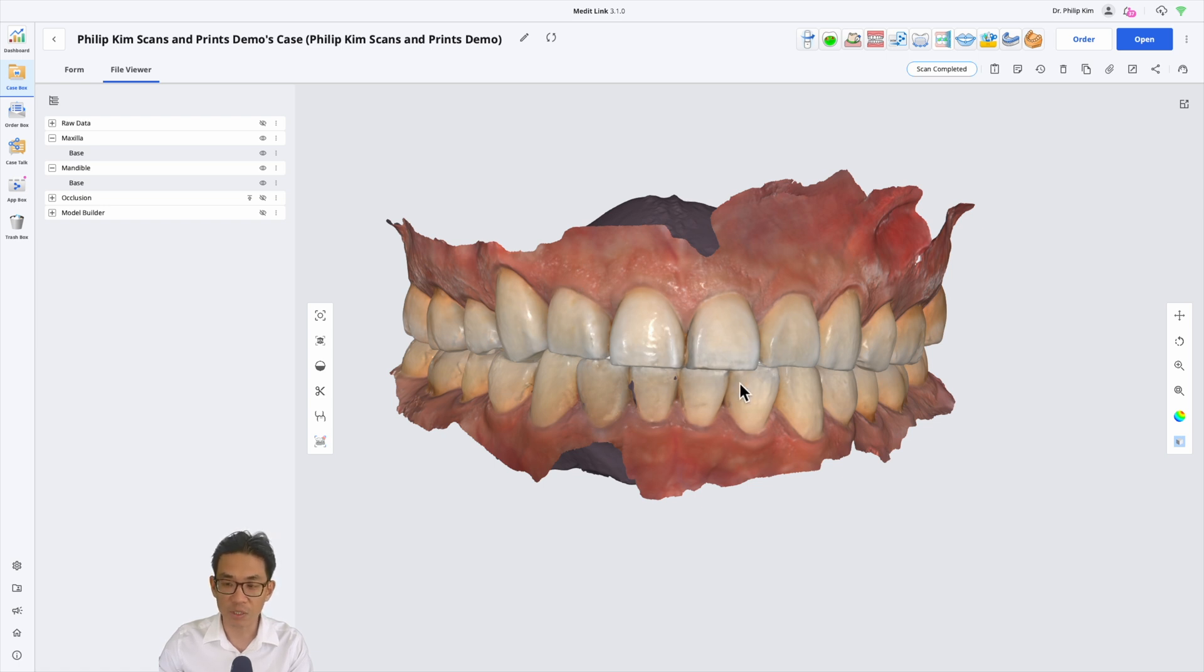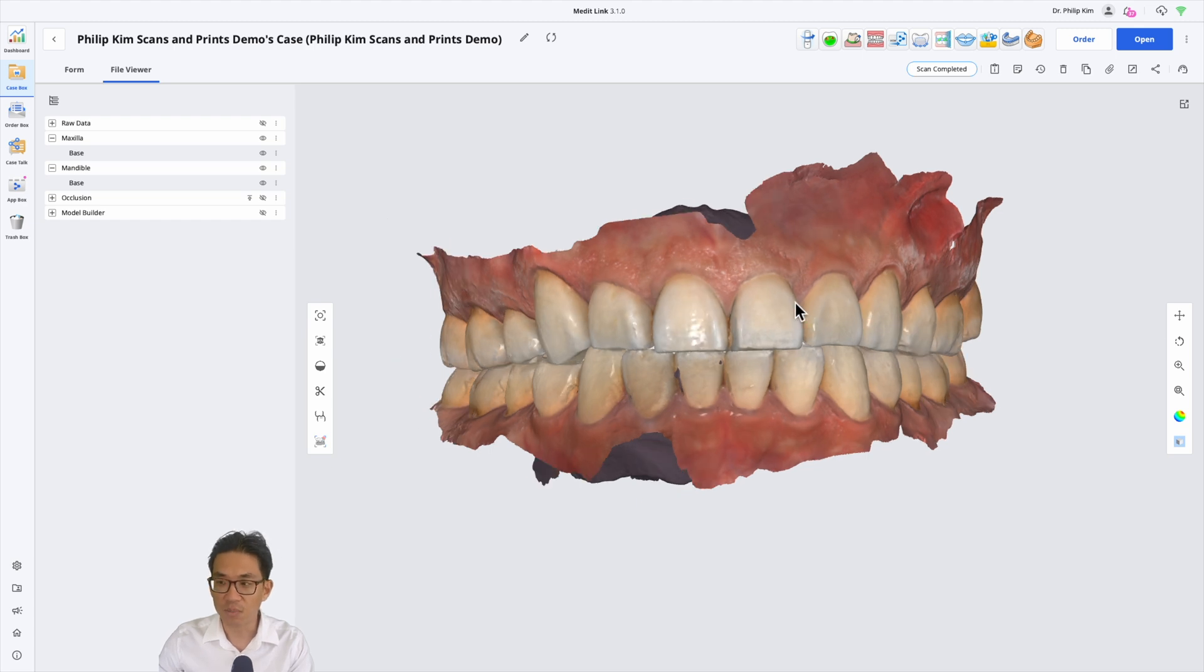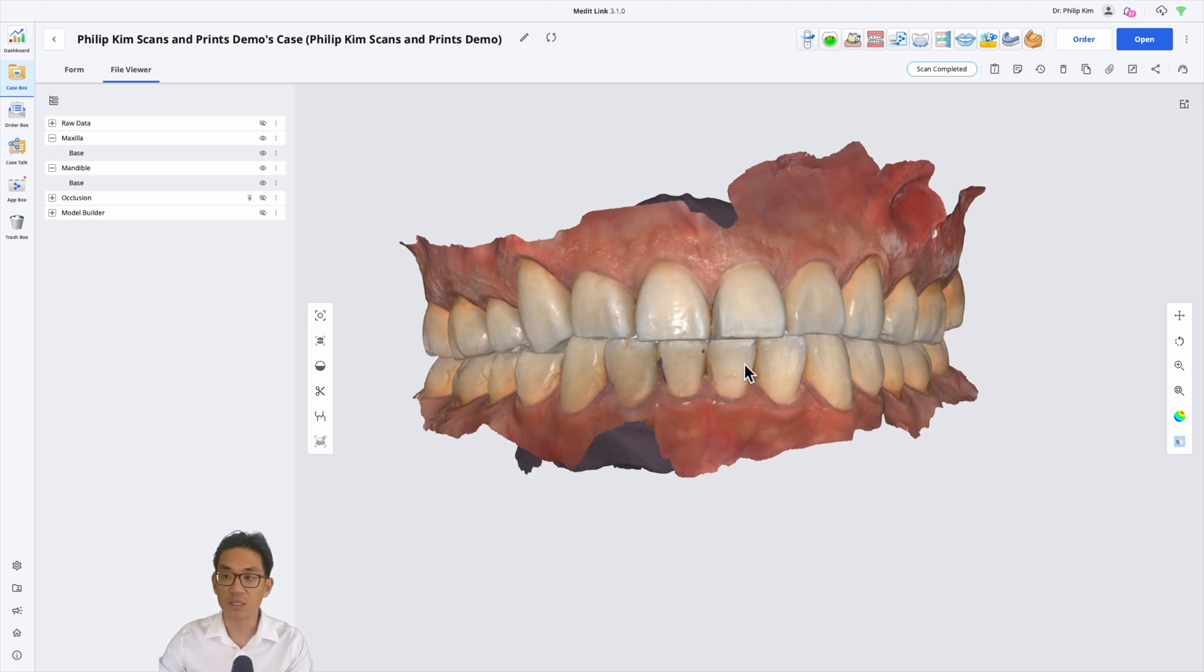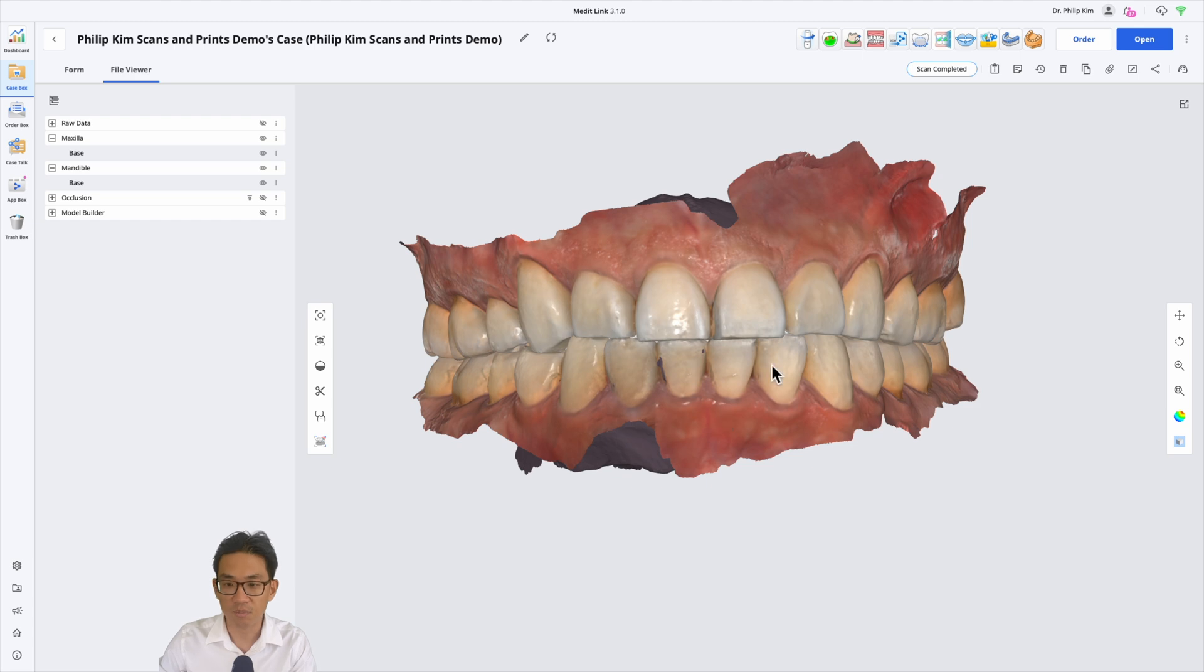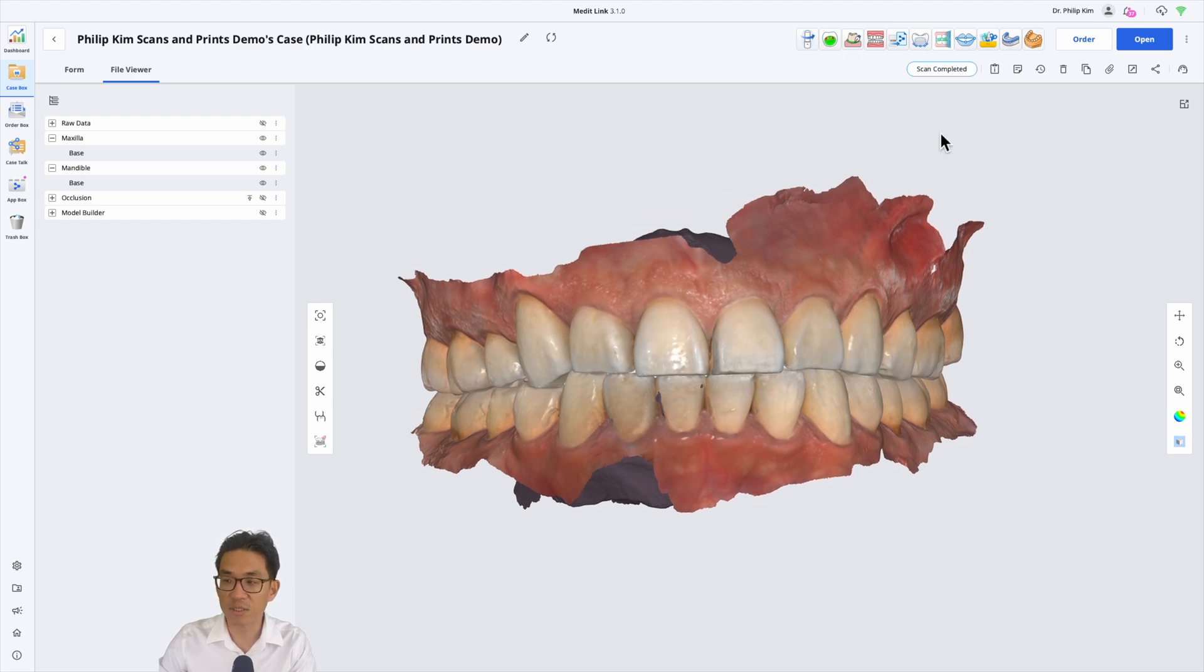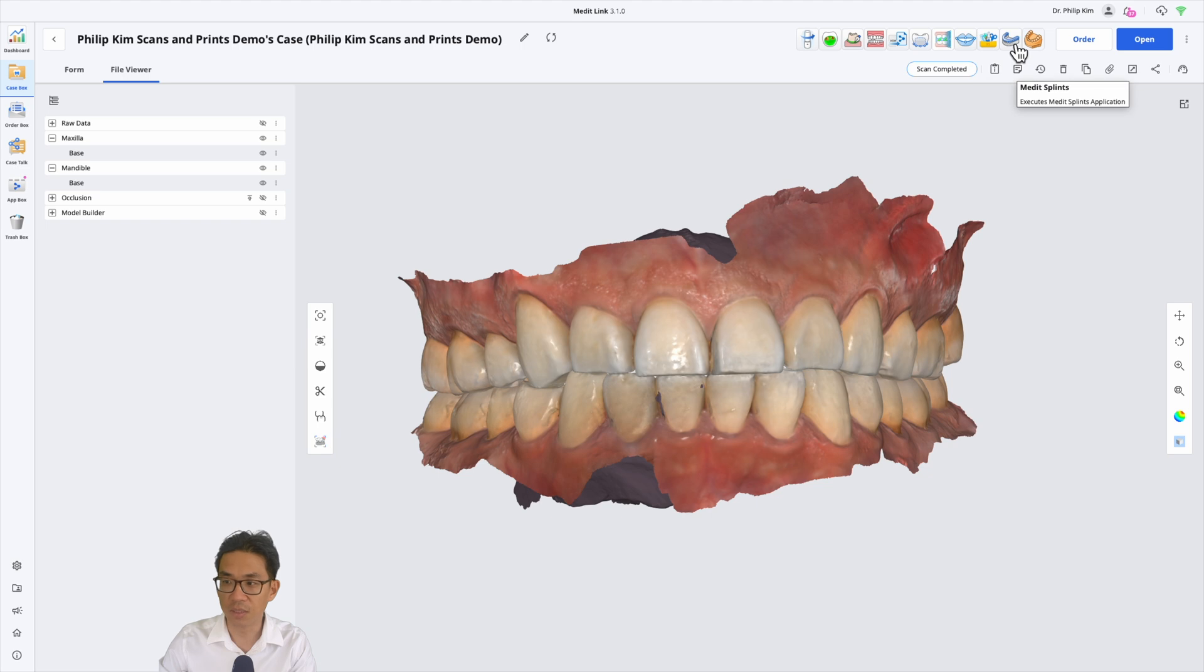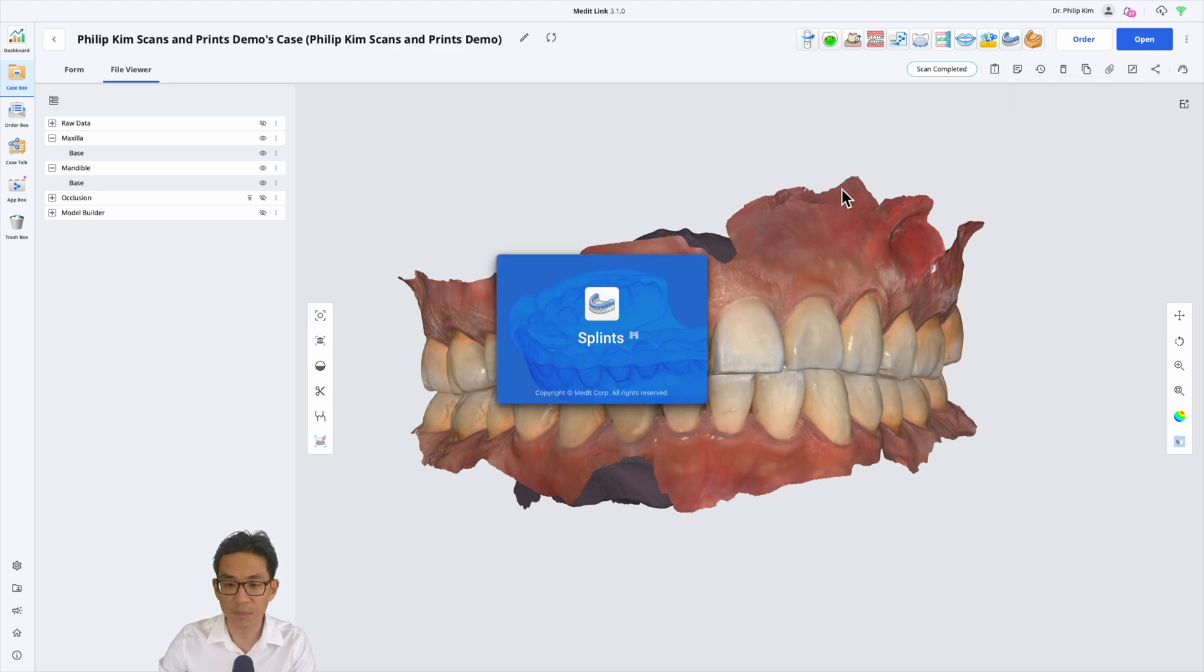If you need more, I believe it's only $1 a month US. I wanted to make a video regarding the software because it's quite powerful and useful. This is what we're using to make night guards in our clinic at this time. I have my intraoral scan and I just click on the Medit Splints app.